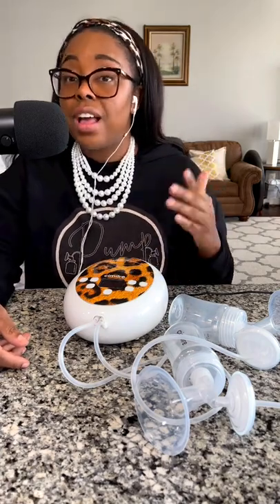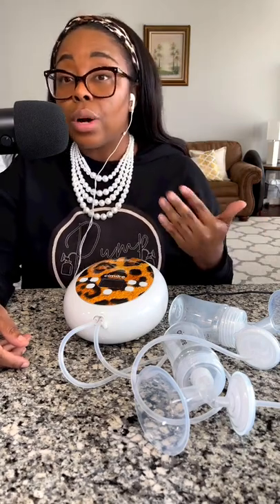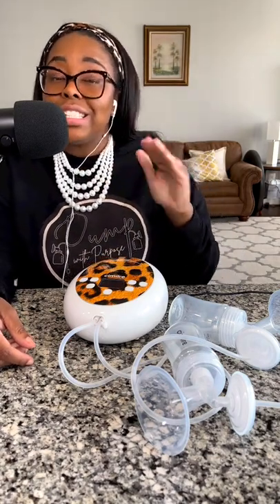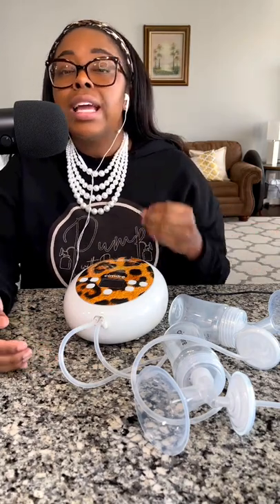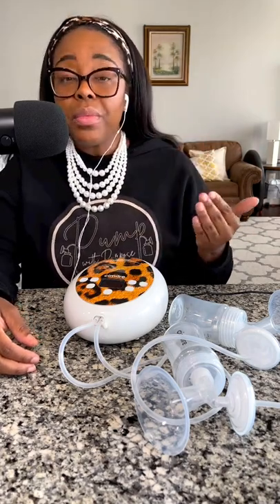Personally, I'm a fast-suction person, so this pump starting at cycle 46 for my full 12 levels is lower than what I prefer. But if you like slower suction, or if you're comfortable with five settings on the massage side, this pump is an amazing, fully customizable option. If you are a slow-suction person, this pump goes all the way down to cycle 30. It's important to understand how pumps work and make sure you are matched to one that works well for you.